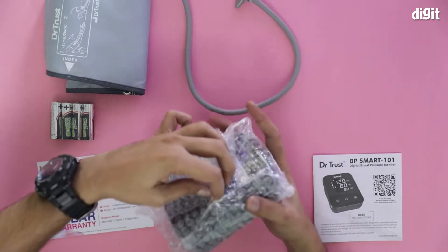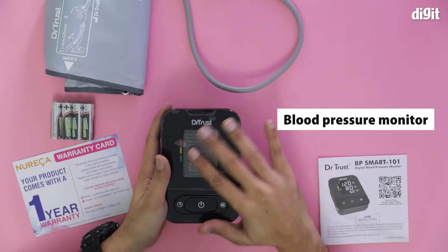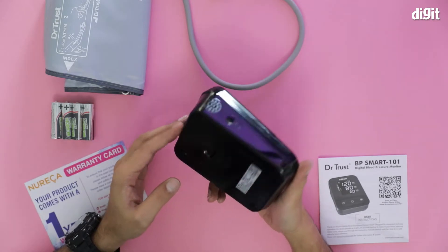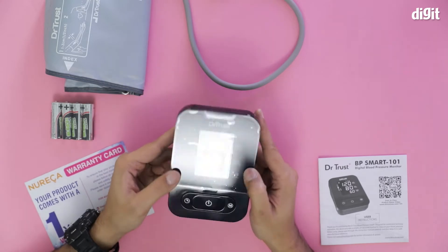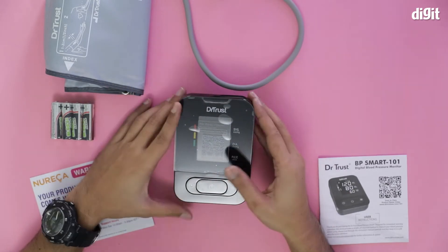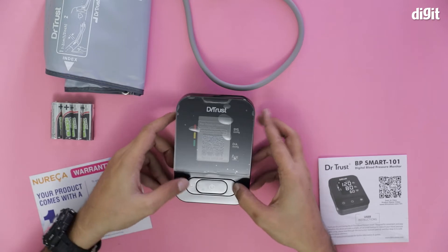I will show you how it's connected. There's a sticker on top — I'm not going to remove this particular sticker because it has some information on it, including a QR code that you can scan and get a product demo. It has a black glossy finish. It is made out of solid plastic, so it's not going to break anytime soon. There are four rubber stops underneath, so it won't be slipping. This is the power button and these are the mode buttons.